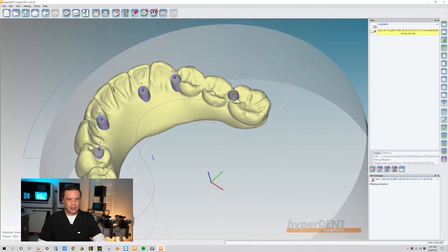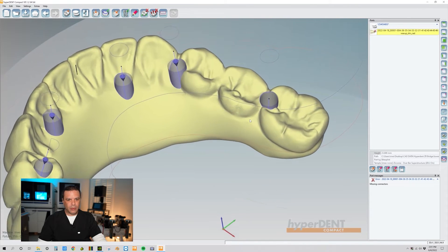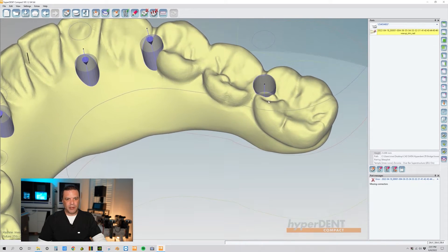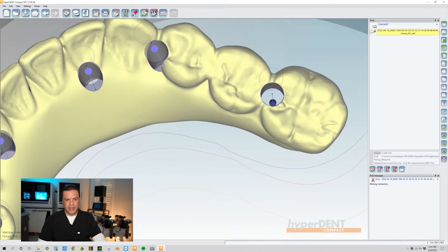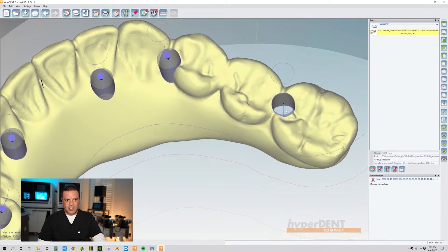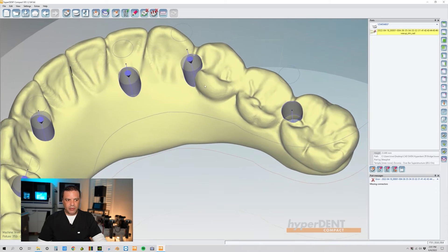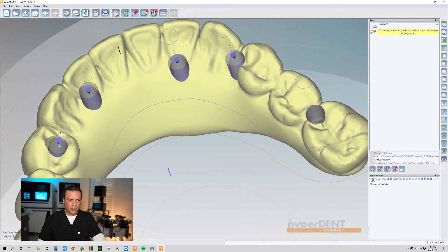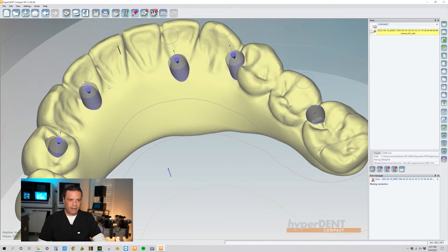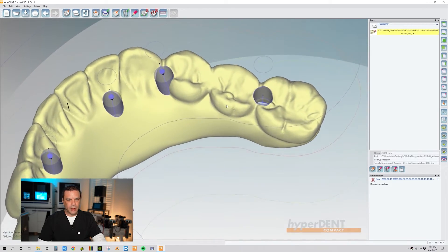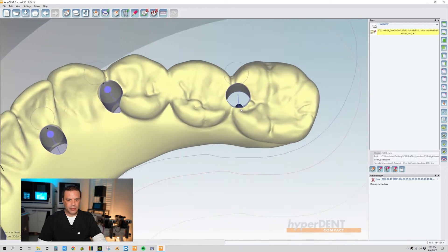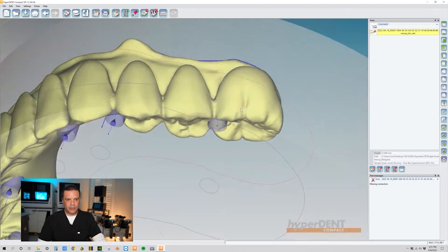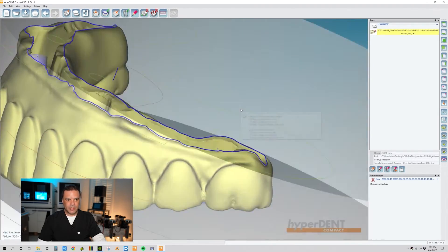All right, so take a look. Whoa, all right, so we have a little problem on this access hole. Now you see how the arrows on these other holes are actually going towards the cavity, and then this one, let me actually turn it around so we see the cavity.